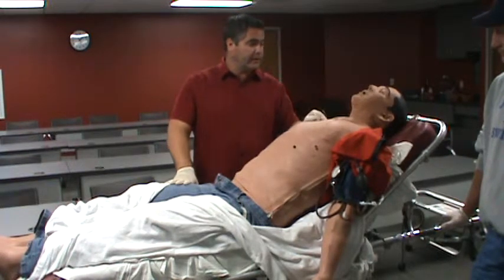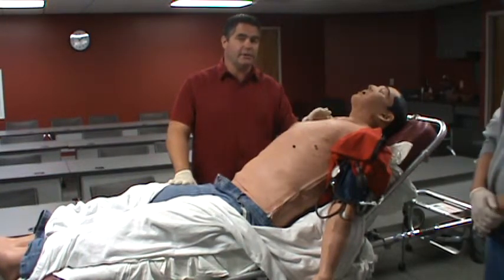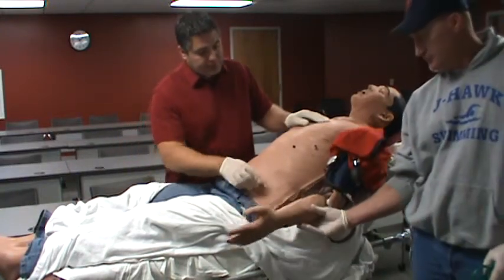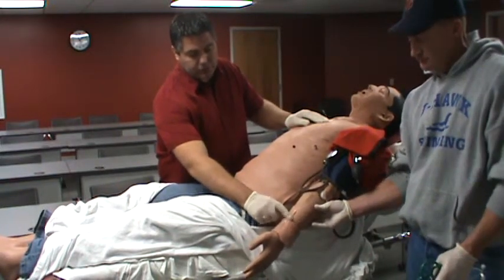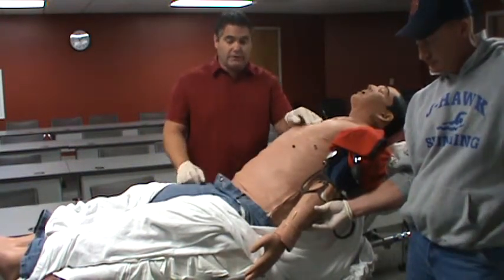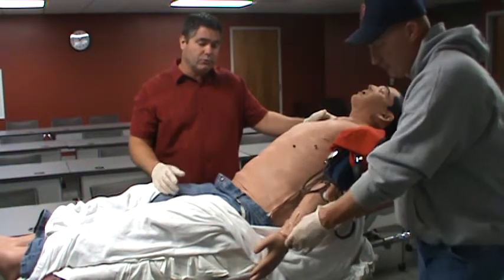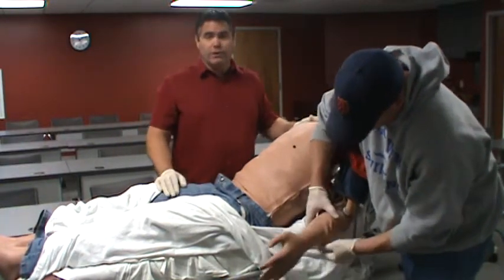He does take an NPA airway and an OPA airway — they're a little bit smaller, and we have a pre-designated airway kit that has strictly those sizes stocked in it. For IVs, a 20-gauge angio at the most. All it really is is a tube with two elbows — you just have to shoot in between those two. Once you're in, provided we have the right food coloring setup, you will see flash. If you don't see flash, you're not in. We can only use distilled water, so we'll give you a pre-spiked IV bag full of distilled water, and you can push meds through that as well.